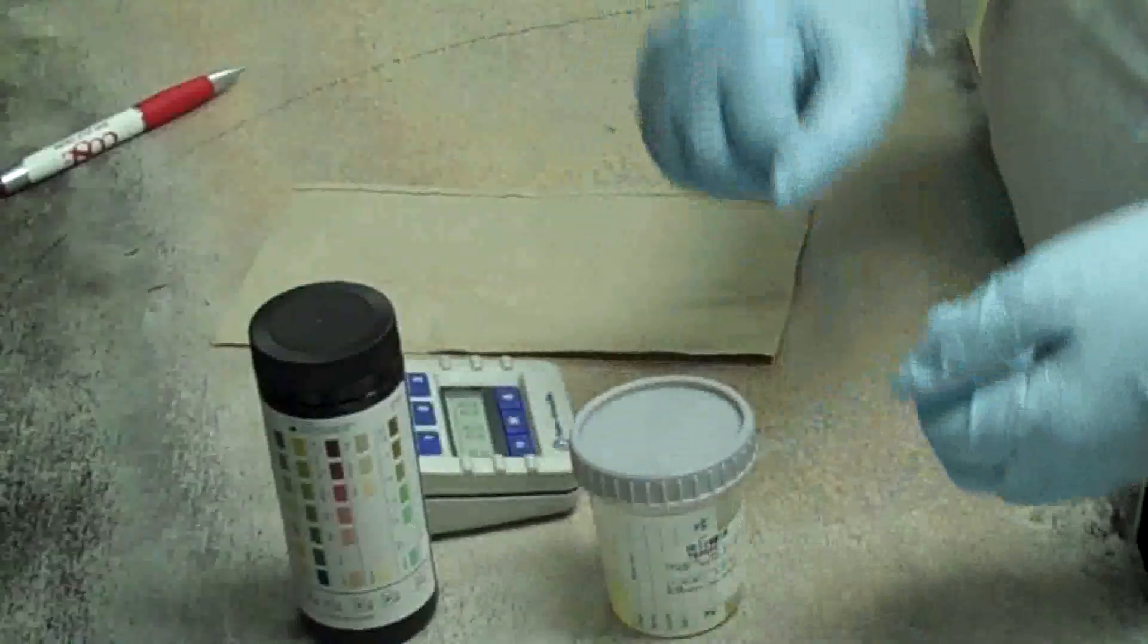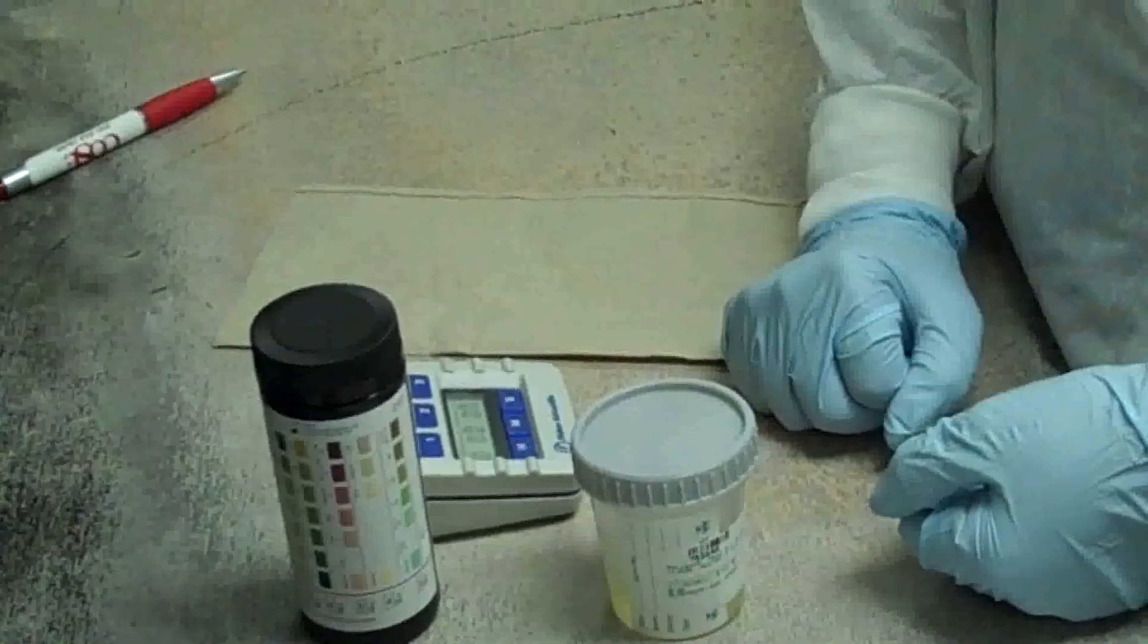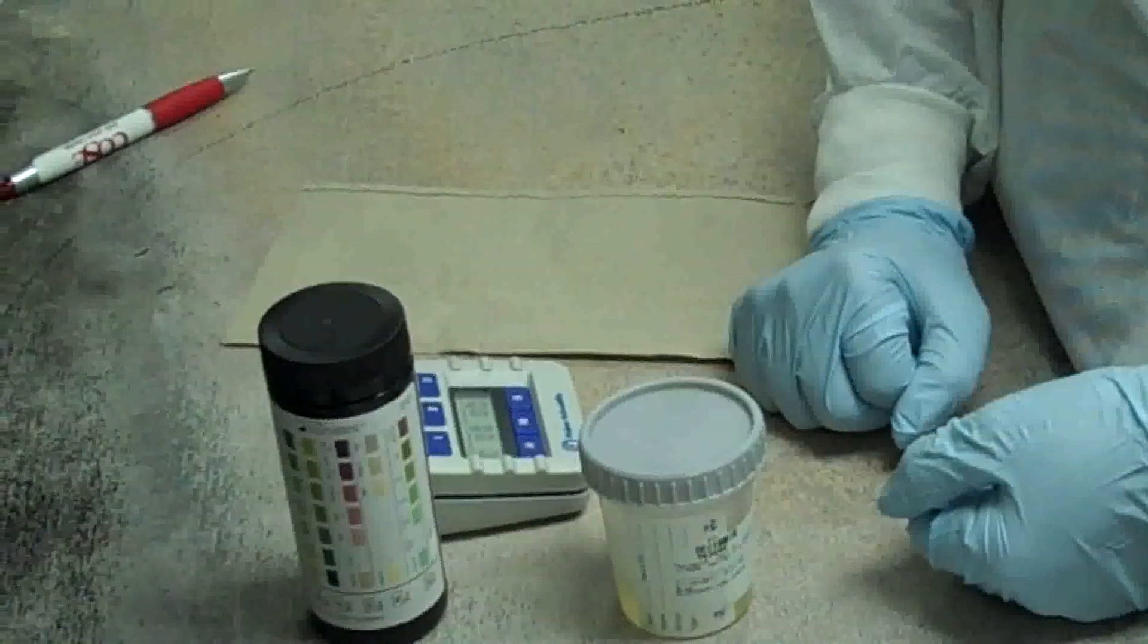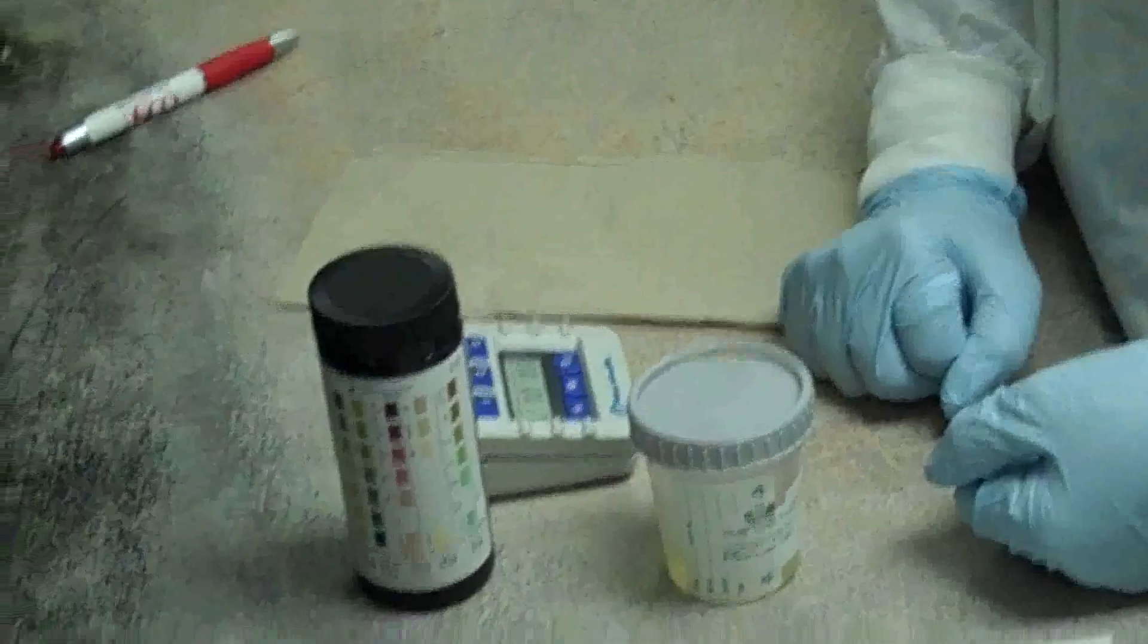To avoid contamination of the specimen, any cultures ordered on the same specimen should be set up before performing urinalysis.